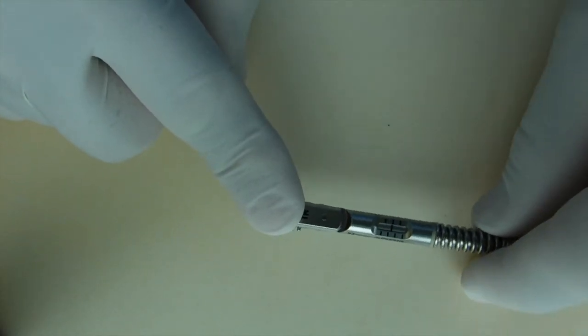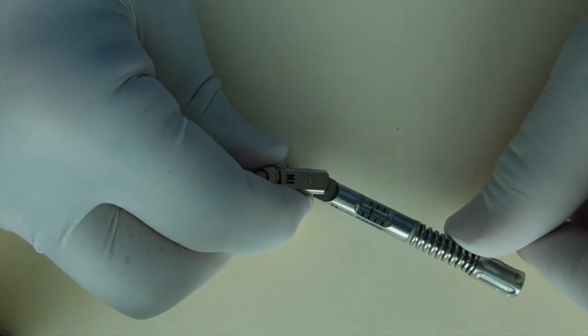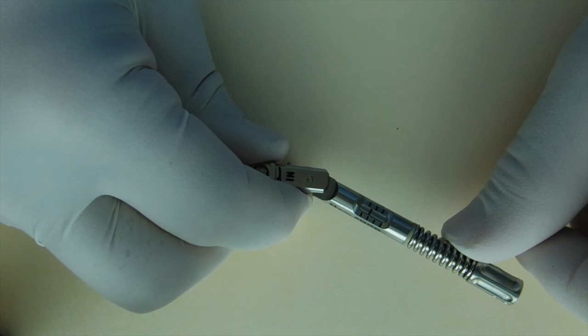One finger on top and you apply the torquing force until the beam deflects or breaks. And that's how you know you've achieved the desired torquing force.